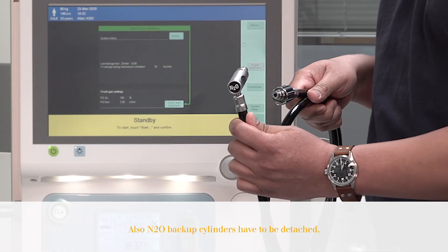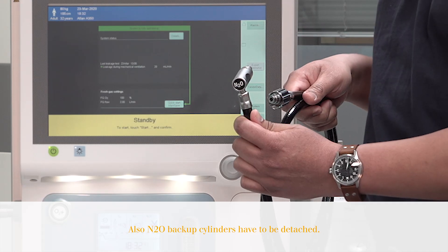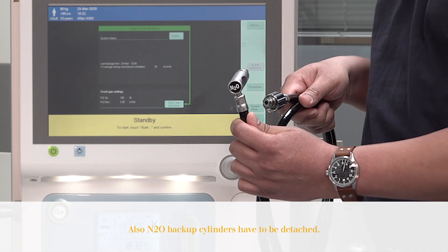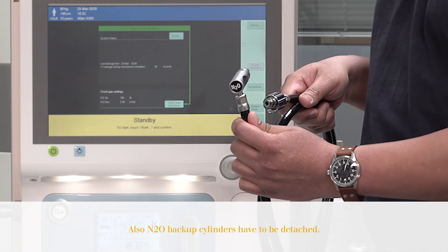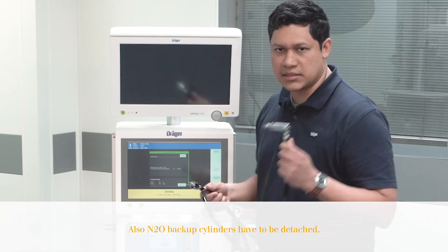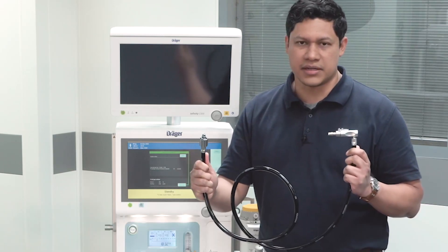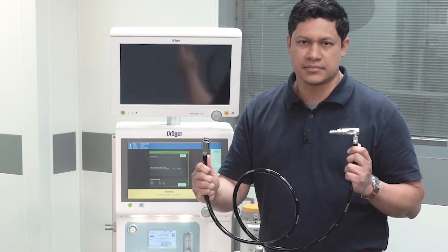Make sure nitrous oxide is not supplied to the anesthesia device. You have to disconnect the hose, starting with the source, and finally at the back of the anesthesia device.